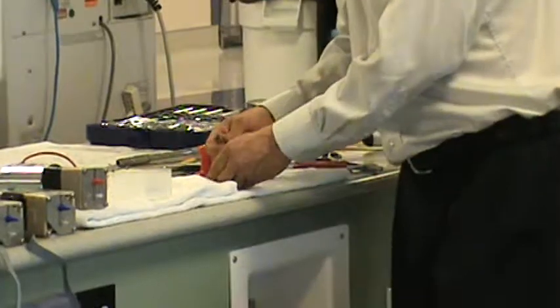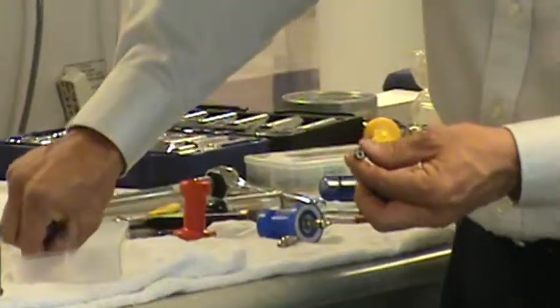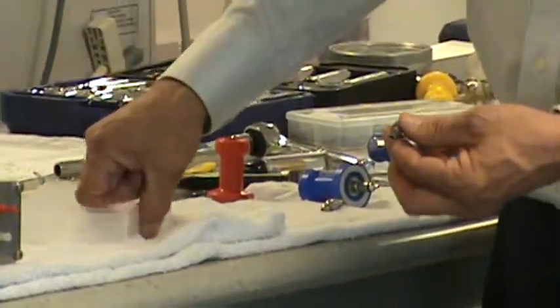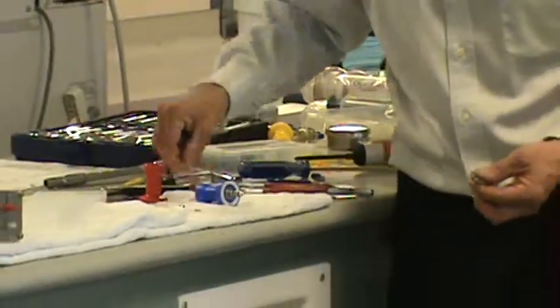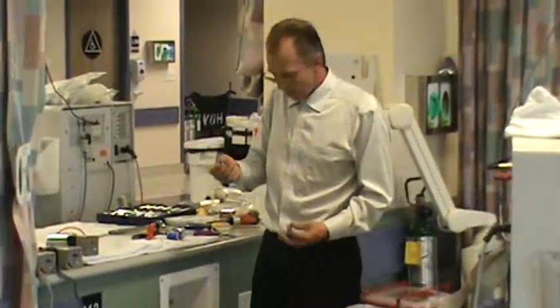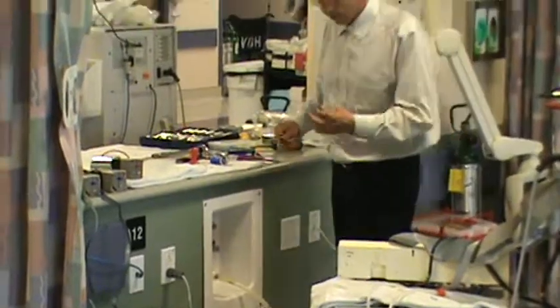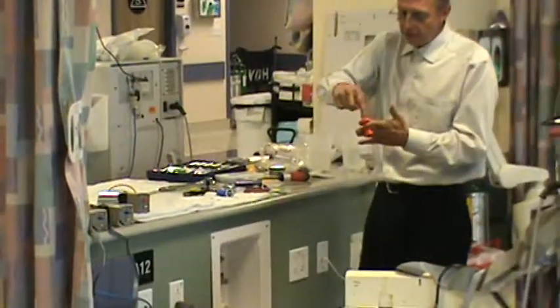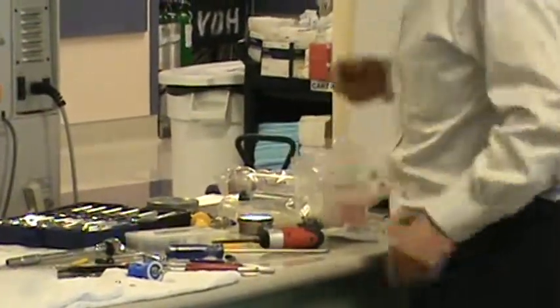I'm going to throw away the old clip and old housing — the spike itself. I have a new locking ring in the PM kit. I'm going to make use of this screw collar assembly, but first I'll clean it by dropping it into some RO water and letting it sit. This is going to be our new spike. I'm going to clean the inside of this acid port out by dropping it in the RO water, then set these aside and move on to the bicarb.